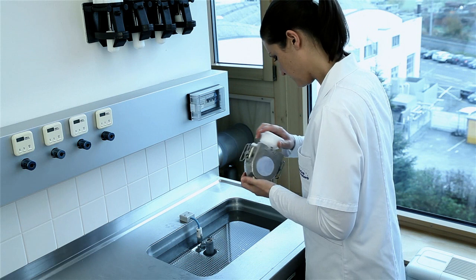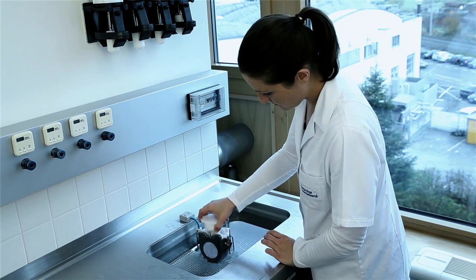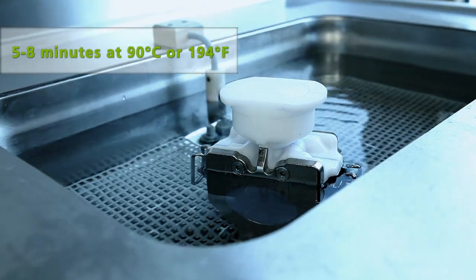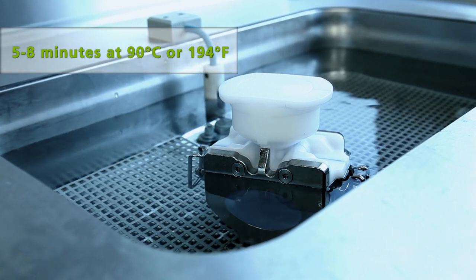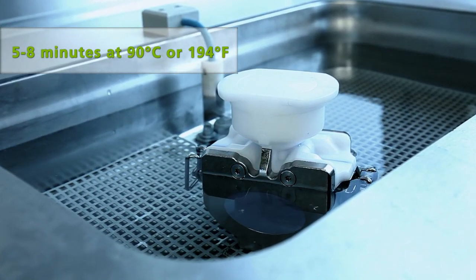Once the stone has set, heat the flask in a water bath at approximately 90 degrees Celsius or 194 degrees Fahrenheit for approximately 5 to 8 minutes.